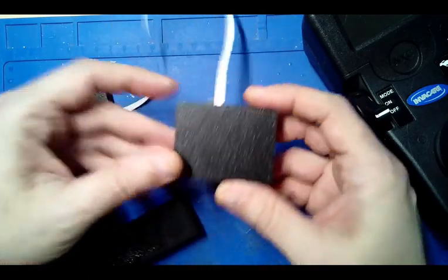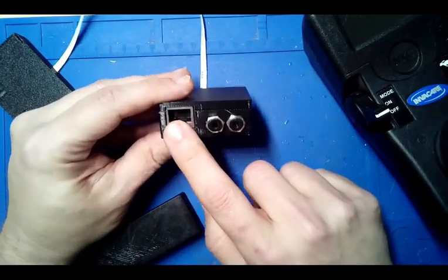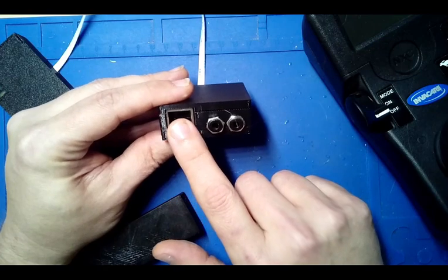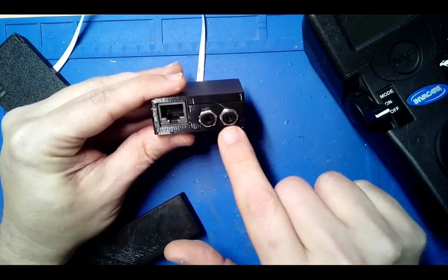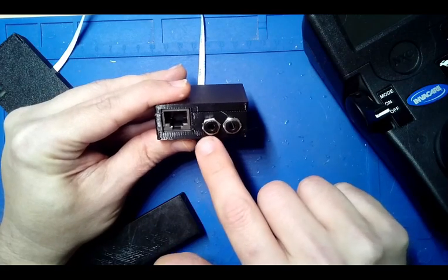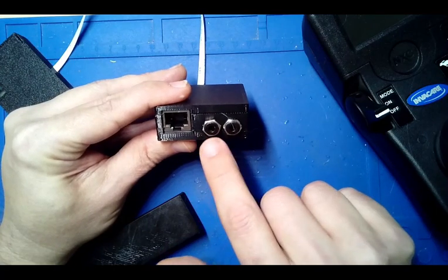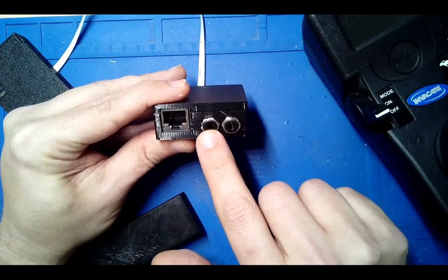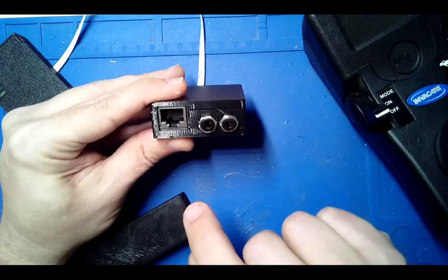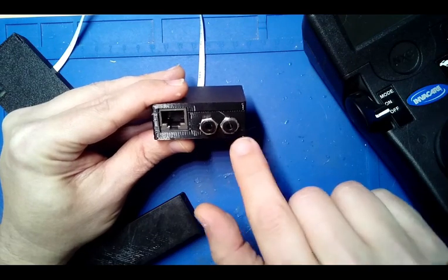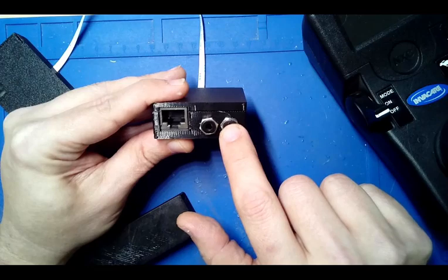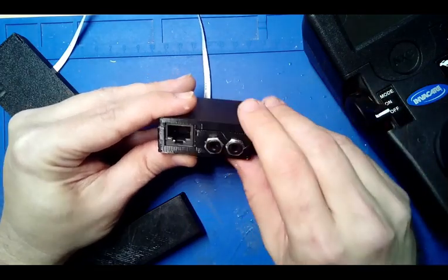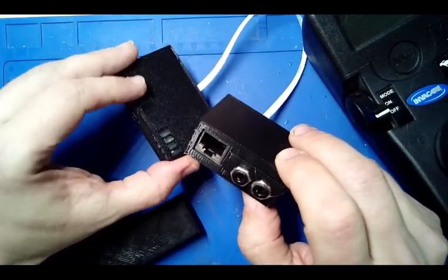One of the differences is where you plug in this RJ45, which goes down to the base. You have the two jacks here, the two ports. One of them is the on/off switch which works like before - it requires a toggle switch to either snap on or snap off. The other one is a momentary switch for toggling to one of the eight different Bluetooth devices.